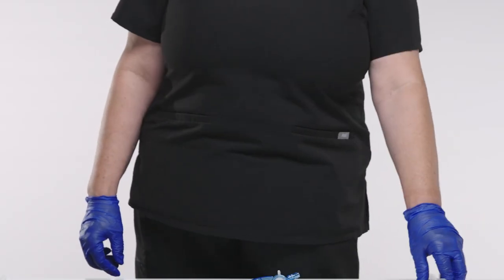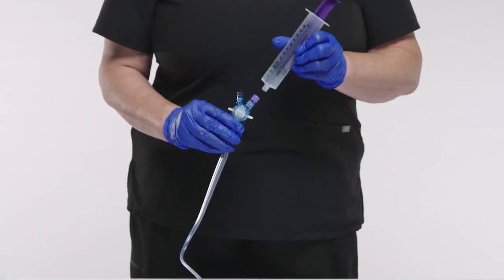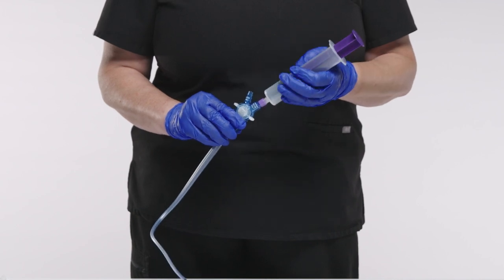Using an EnFit syringe, connect to the feeding port and use a quarter turn for a secure seal. Do not over tighten the connection.